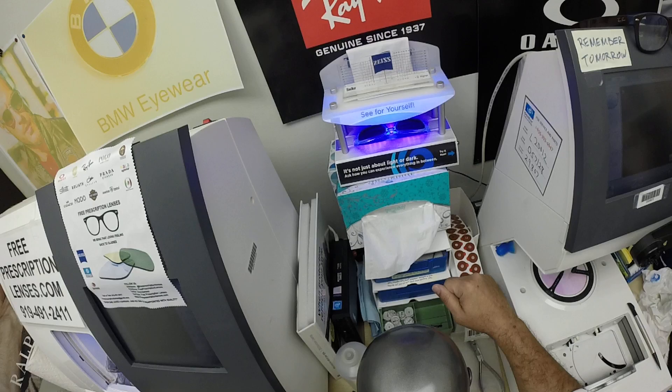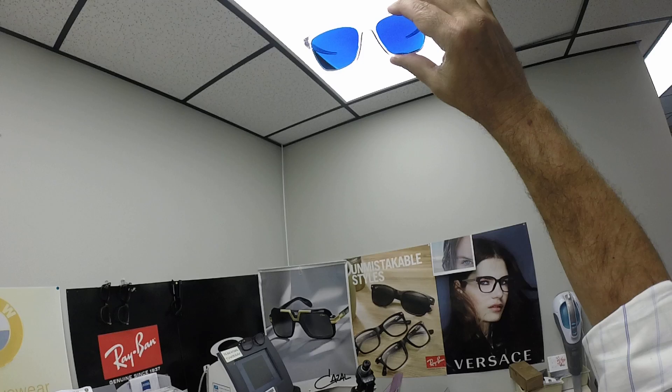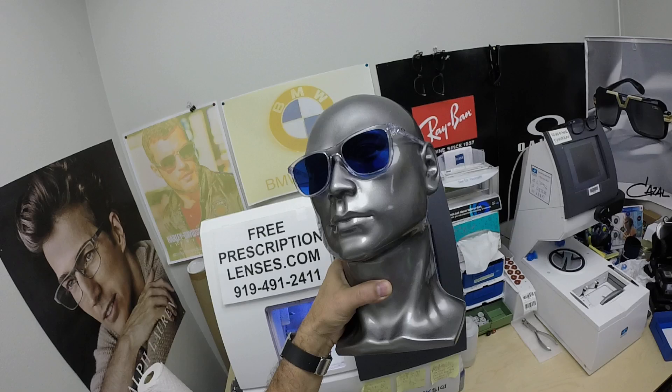It takes a little longer when you come back inside — 45 seconds to a minute, minute fifteen. All photochromic lenses will get dark on day one and continue to darken every day for the first couple of weeks they're exposed to the sun. After that, they will work for years at maximum performance.